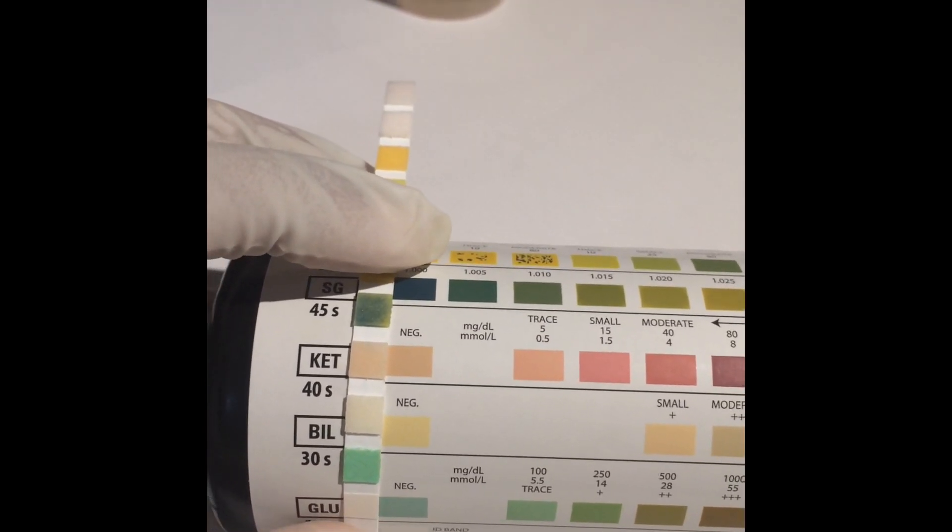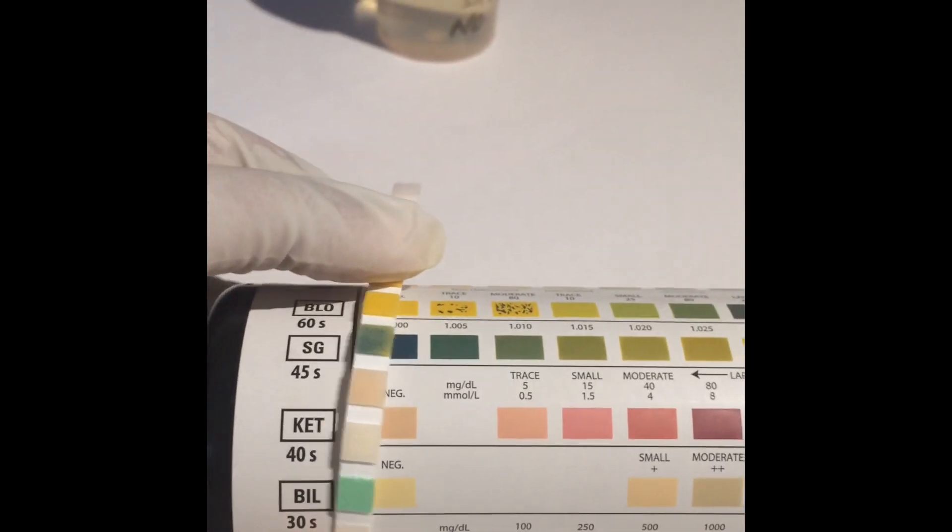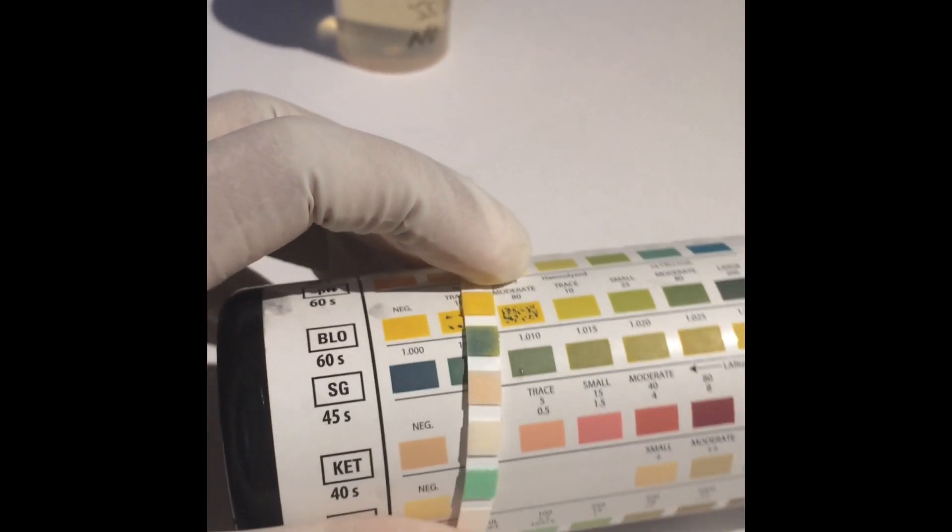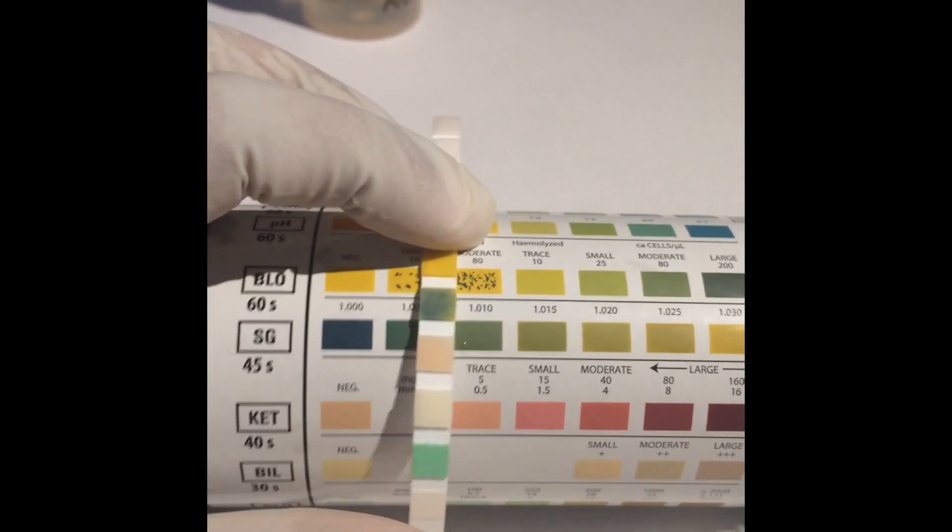Specific gravity, the color is comparable to 1.010. Blood test is negative.